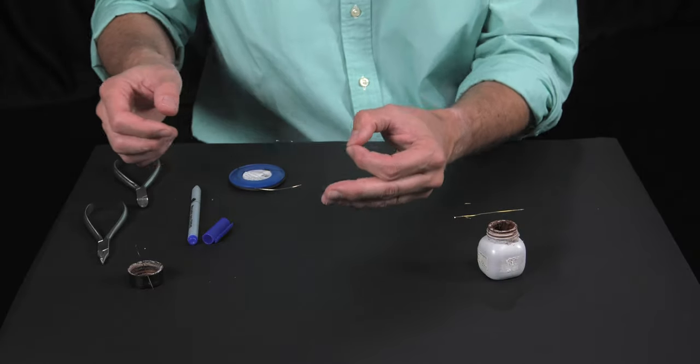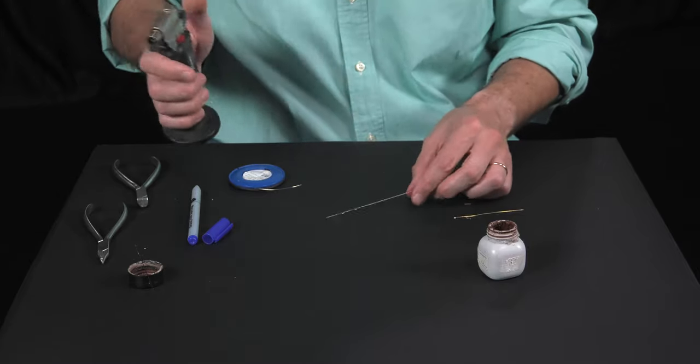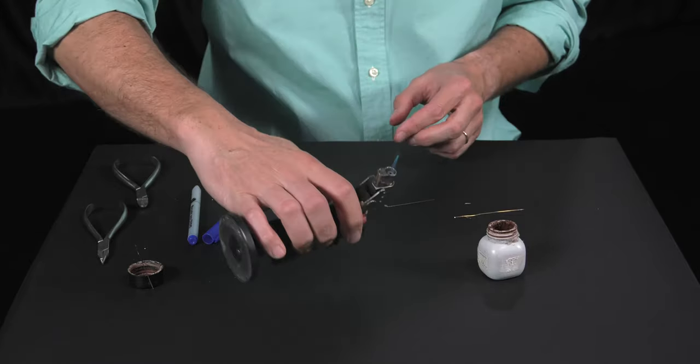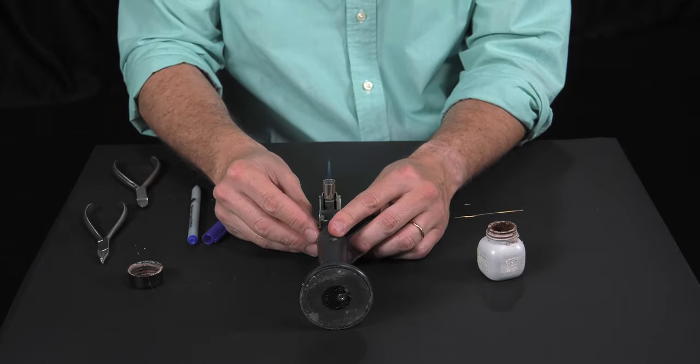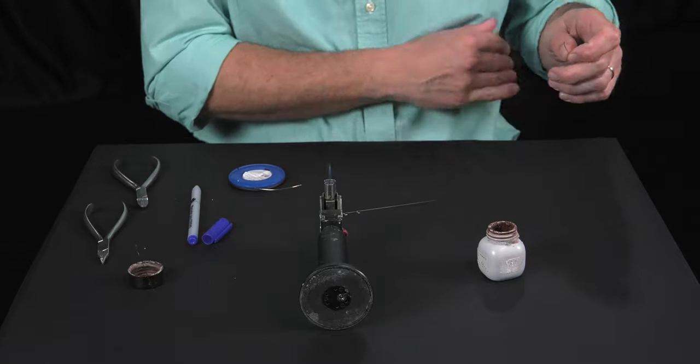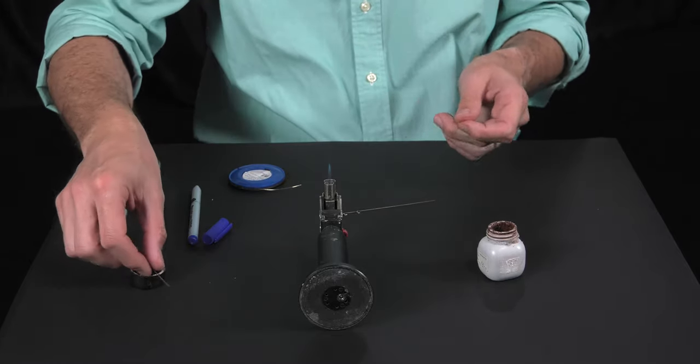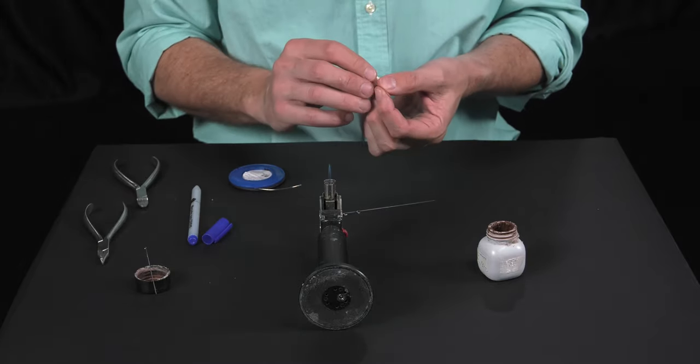In the indirect method we don't need to stabilize the brass wire and the archwire, because what we're going to do is, as in the previously described method, generate the brass wire segment with the silver solder balls.